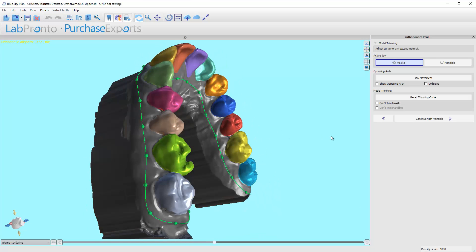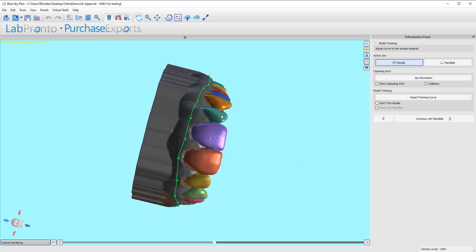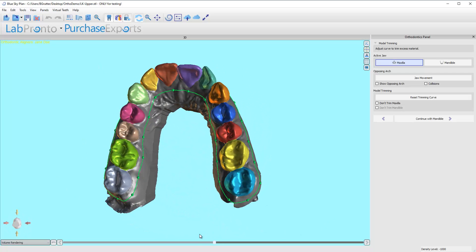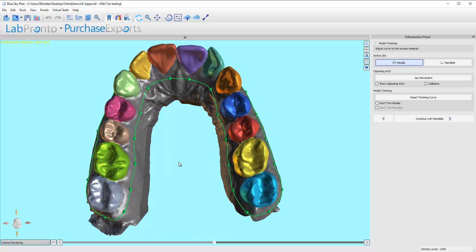This is the auto trim line and what it's done is developed a line that tracks below each of the teeth and is going to cut away everything below that. I'm going to show you a trick — this is what I do in all my cases, and I've changed this over time. This is pretty consistent now and what I'm always doing.